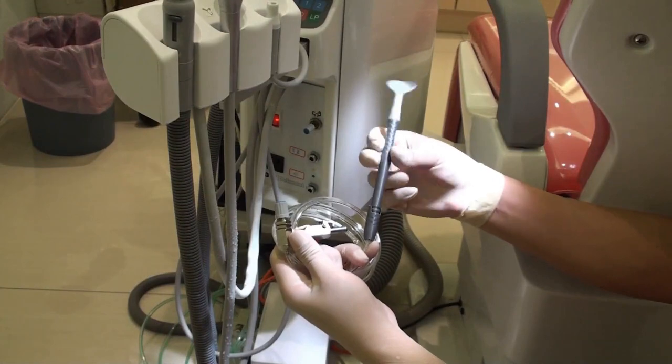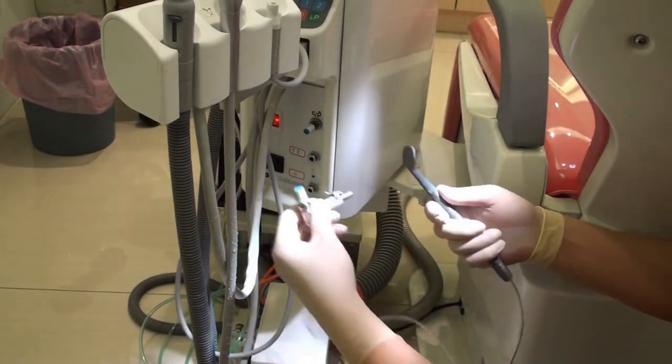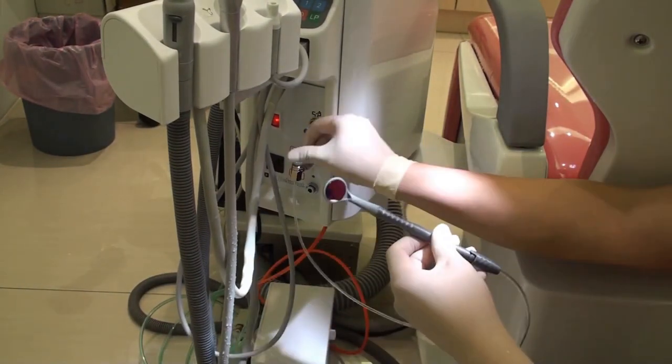Now we'll show how to connect directly to the dental unit. It connects to the air output. Once it is connected, you can test and adjust the airflow to your preference.